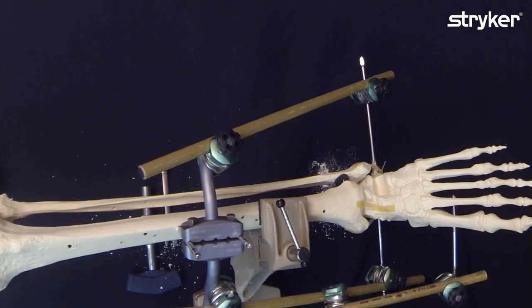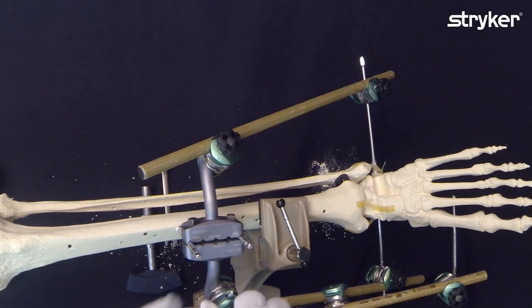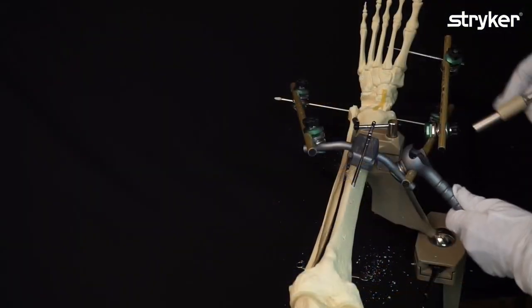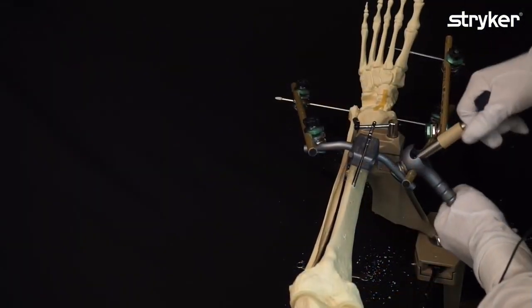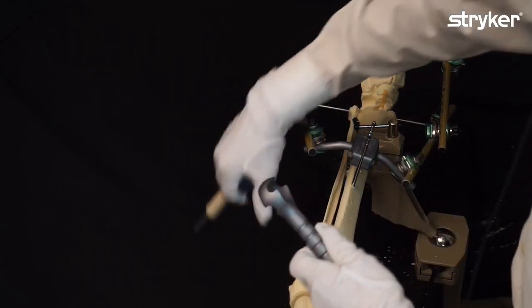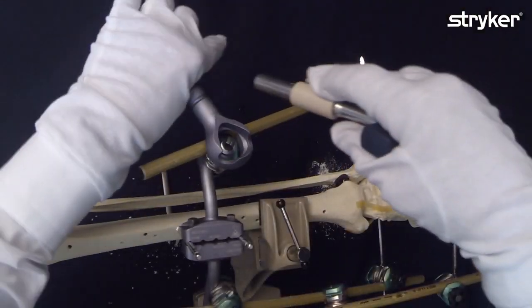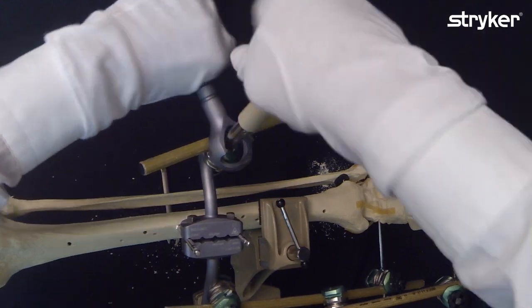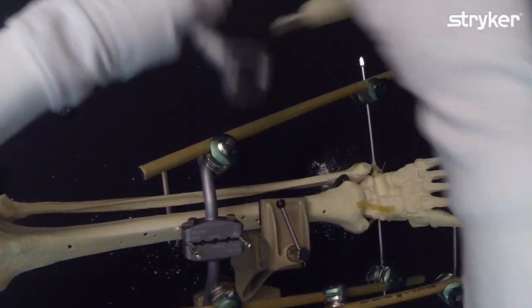Reduction is okay. Distraction is okay. Now final tightening. One option is the T-handle to the counter torque wrench. T-handles indicate if they are okay.